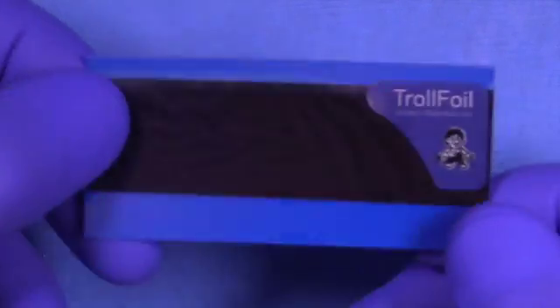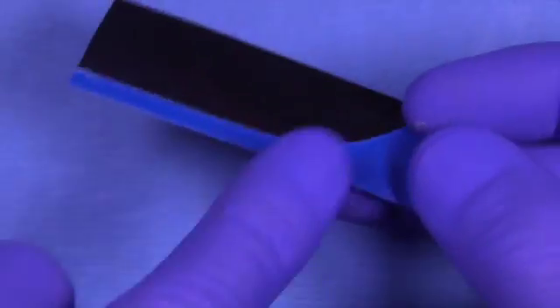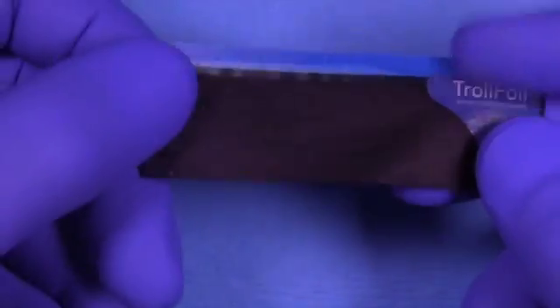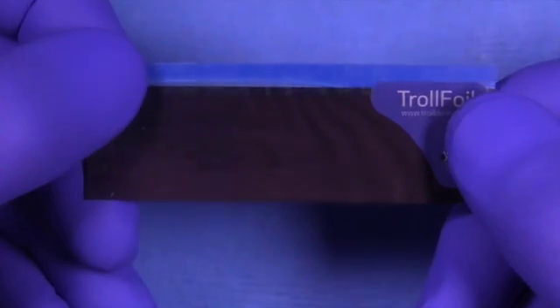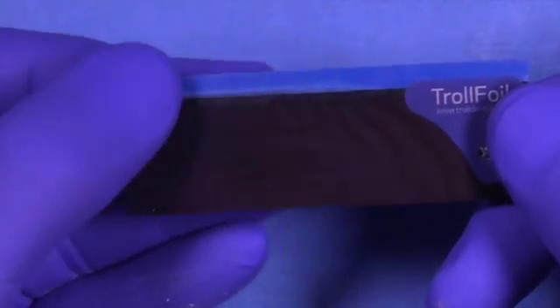This is Troll Foil. In my opinion, I believe it is the finest articulating paper you can find anywhere. Number one reason is it's eight micron—very very thin, you don't get any thinner than that. The other reason I really like this is it has a built-in holder so you don't have to mess around with paper forceps or anything. It's rather stiff so you can get it in the mouth pretty easily. The most important thing is it marks really well. It's very interesting that something so thin would mark so exquisitely, and I just haven't found that with other papers.